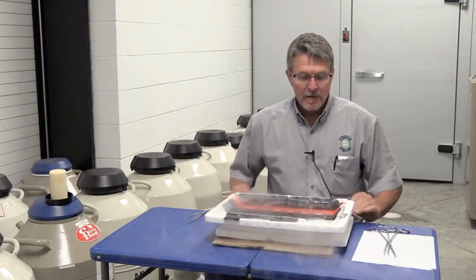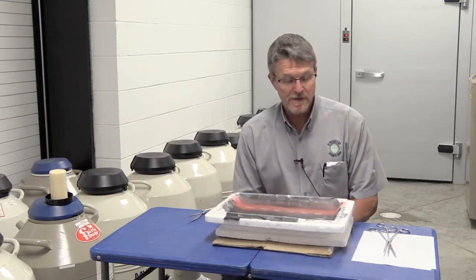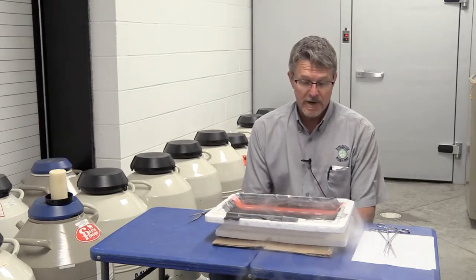We're going to talk about the recommended process that RSG — Reproduction Specialty Group — wants you to use when you split canes. If you're moving one or two straws, say somebody buys a couple straws, you need to split a cane and take them from one cane and goblet and move them to the next. This is the process we're going to go through.